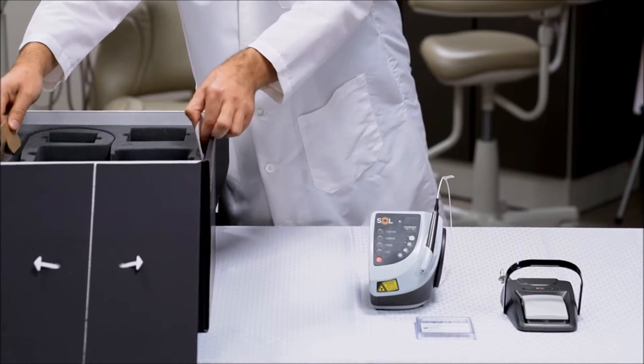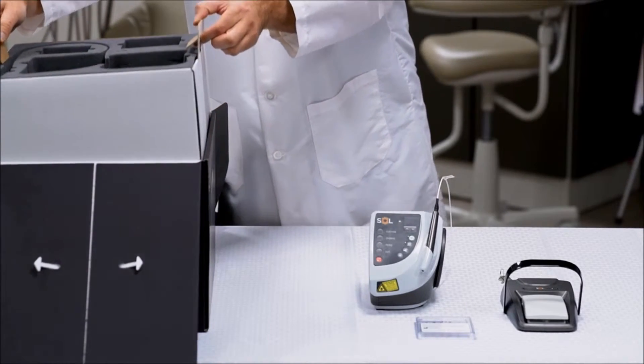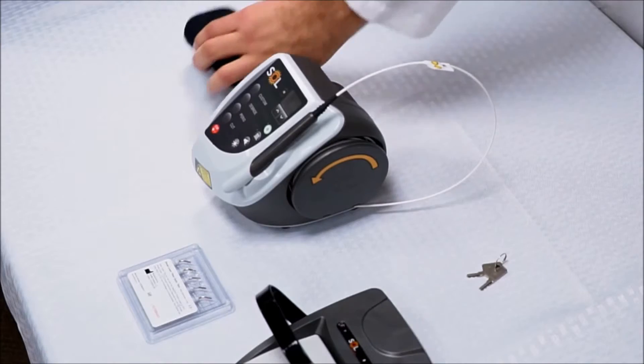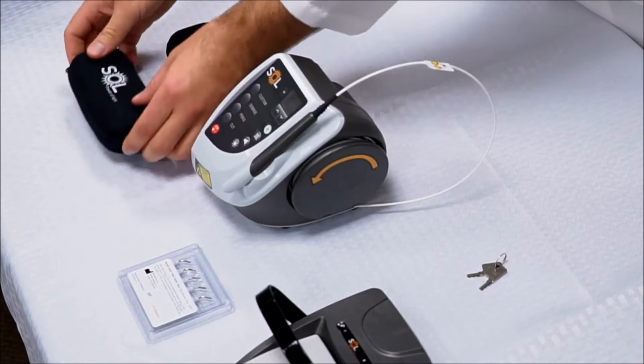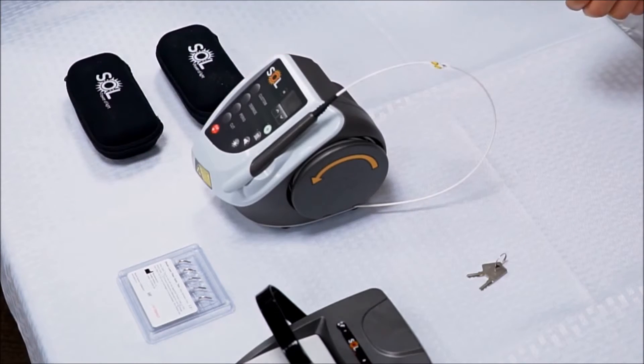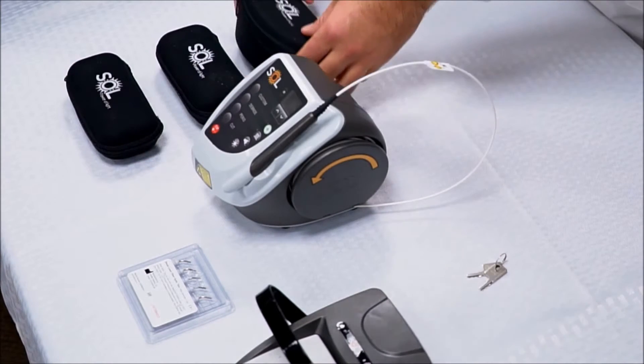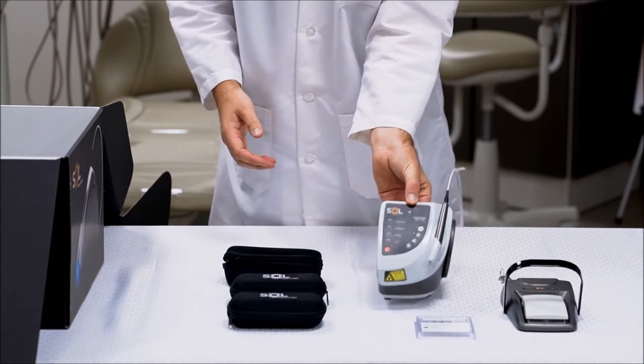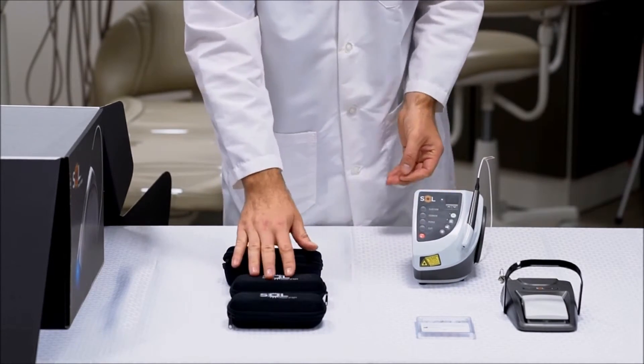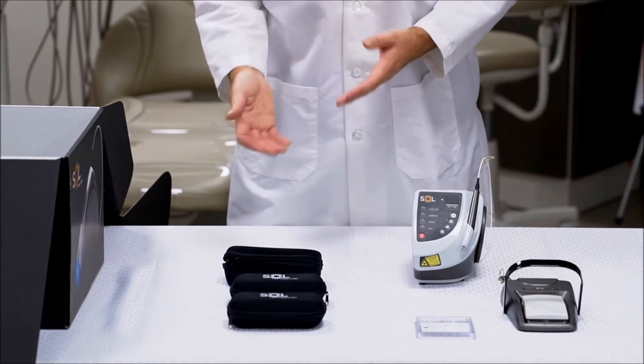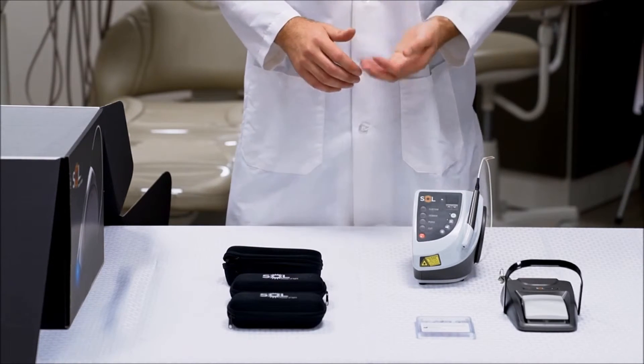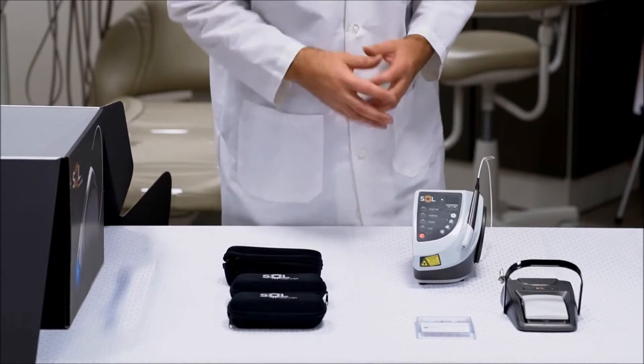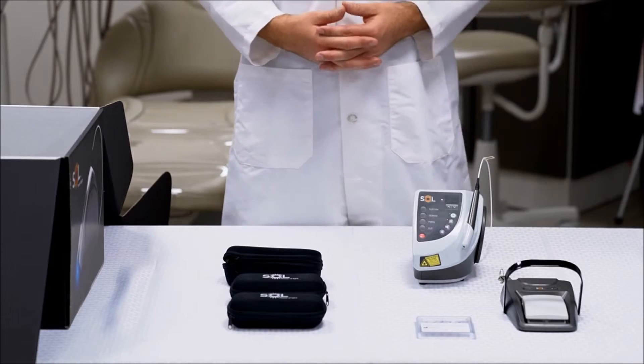Now, underneath, if you pull out this foam insert, you will find three sets of laser safety glasses. These glasses should be used any time the laser is being performed. You have one set for the operating clinician, whoever is actually doing the procedure. You have another set for anybody in the operatory assisting with that procedure, perhaps a hygienist or an assistant. And then, of course, a set for the patient. This is to make sure there's no harm done to the retinas.